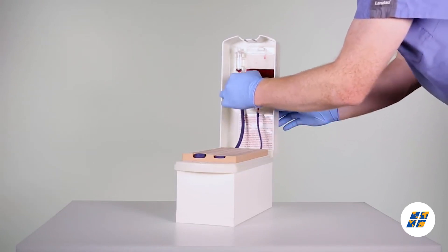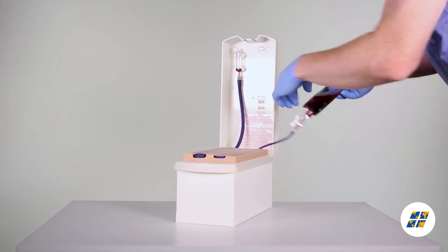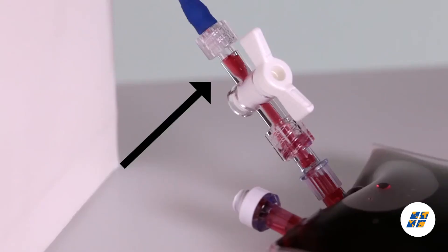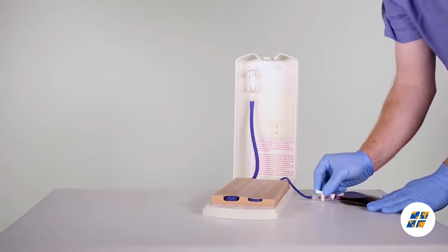With the new and improved 2365 Advanced Venopuncture Training Aid, staff can improve hand-eye coordination, gain confidence, increase successful access, and improve patient outcomes.